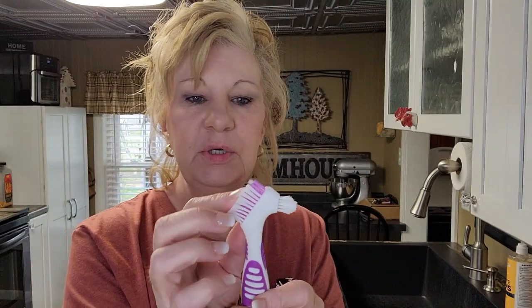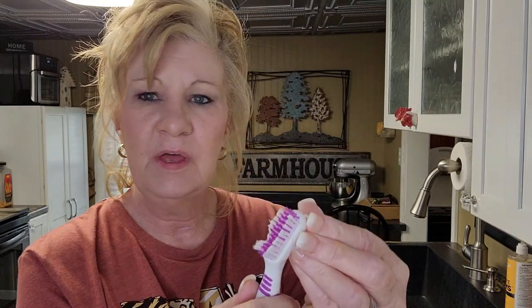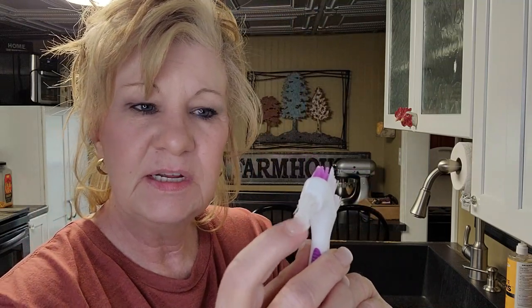Something else you need is a brush. You can use a denture brush, but some people think it's too hard on dentures and choose to use a child's small toothbrush instead — soft, make sure it's soft. I like it because it gets up underneath and in the front area really well.